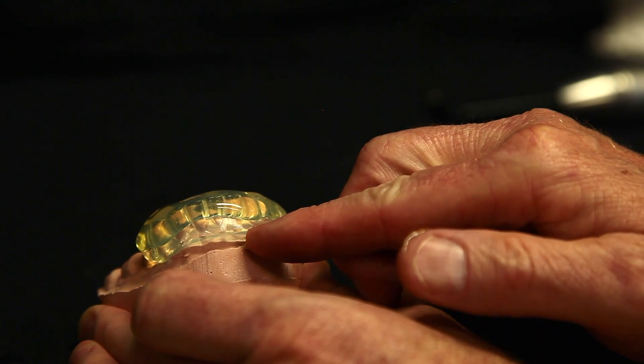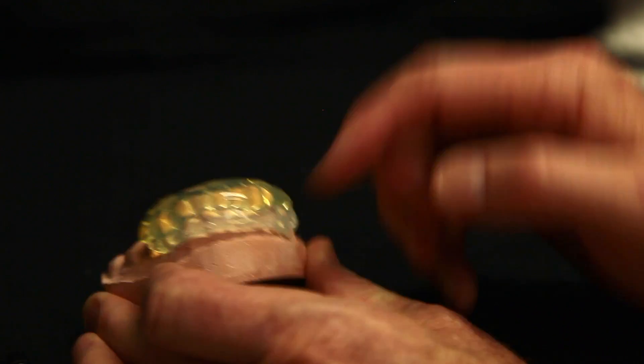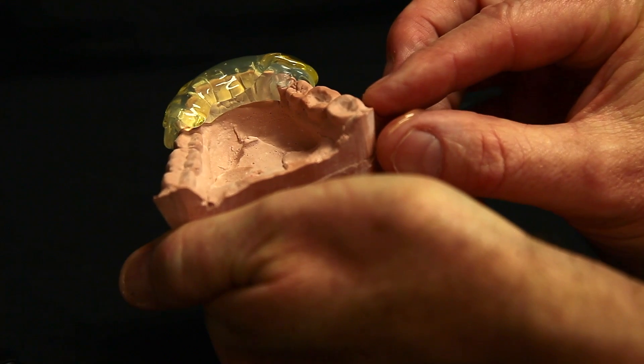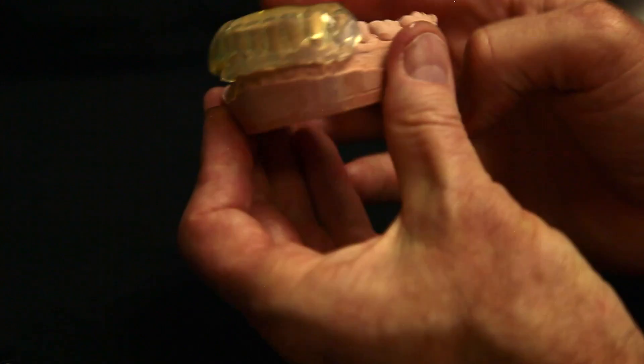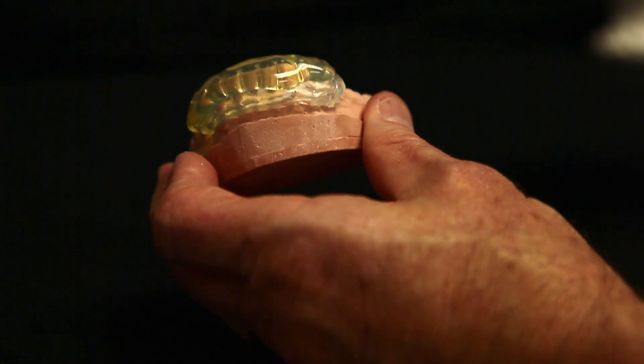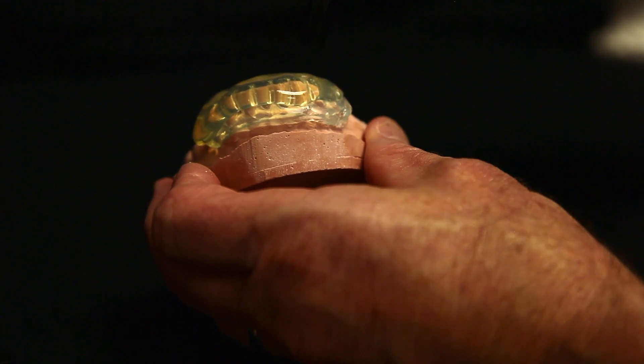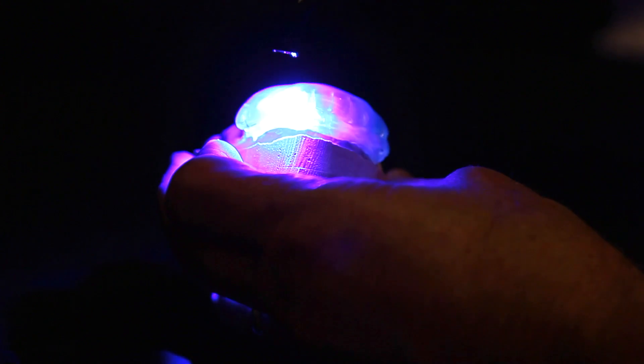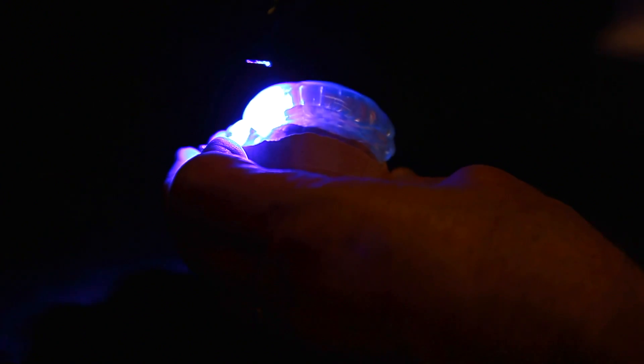As long as it comes down to just above here, and some on the lingual, it'll distribute the forces evenly enough. Now, it's really important. We're going to go ahead and just set this material. Don't stick this in your Triad oven.